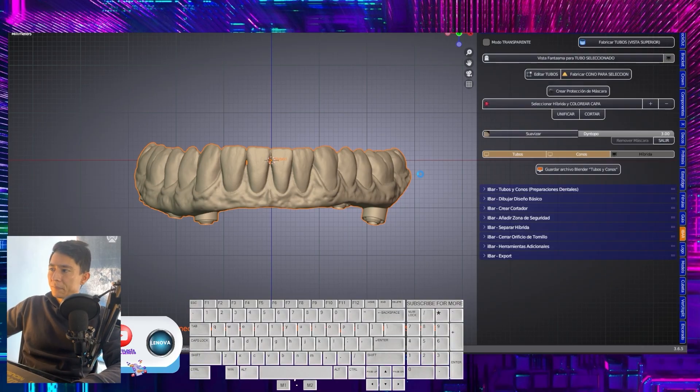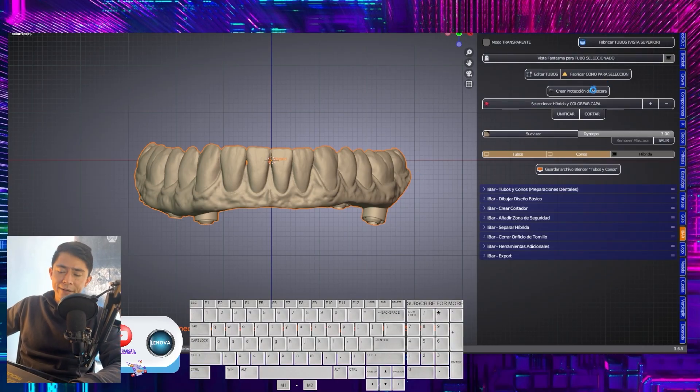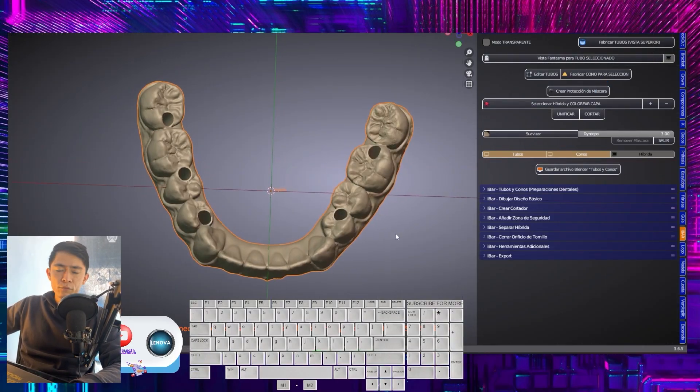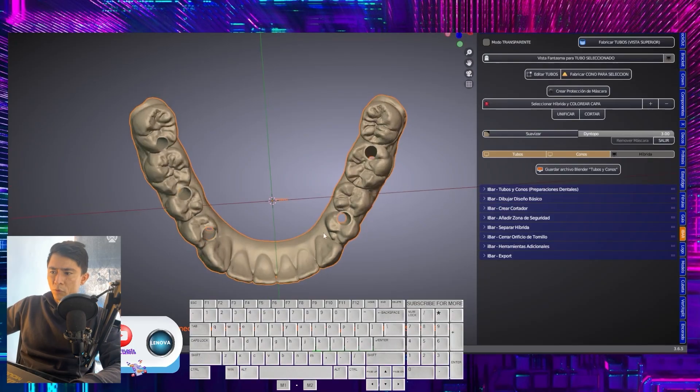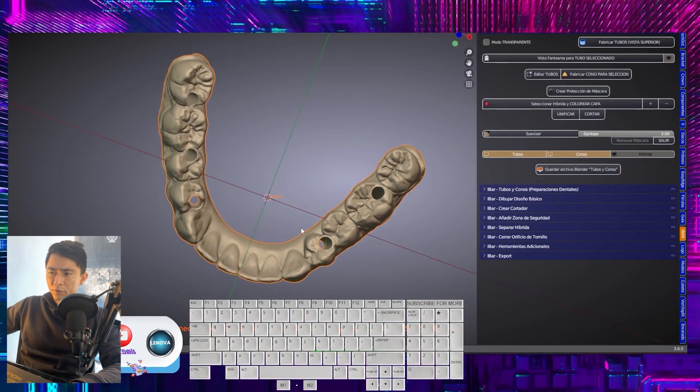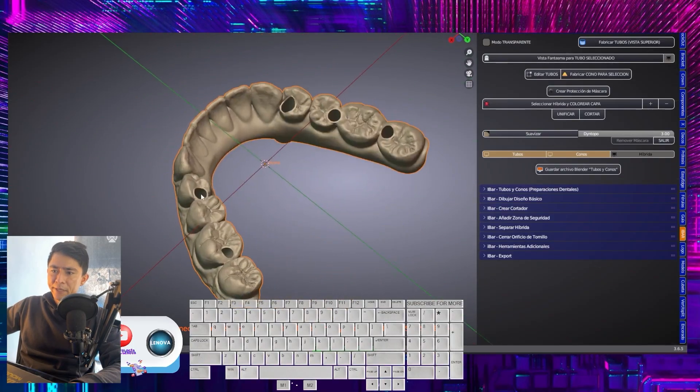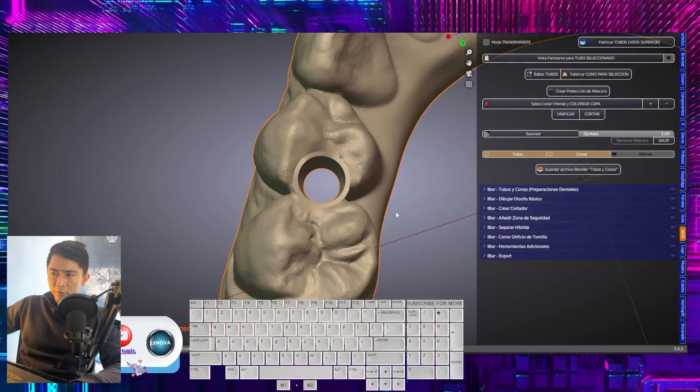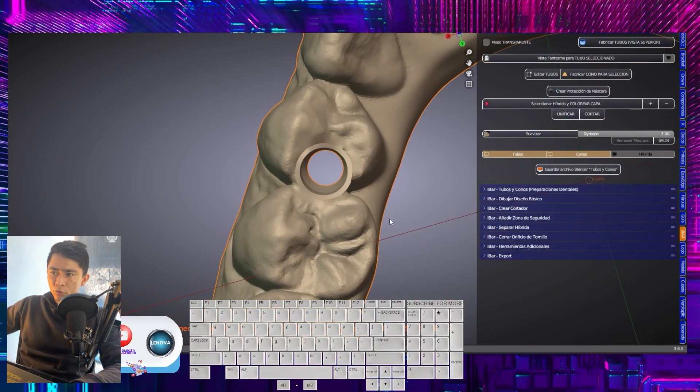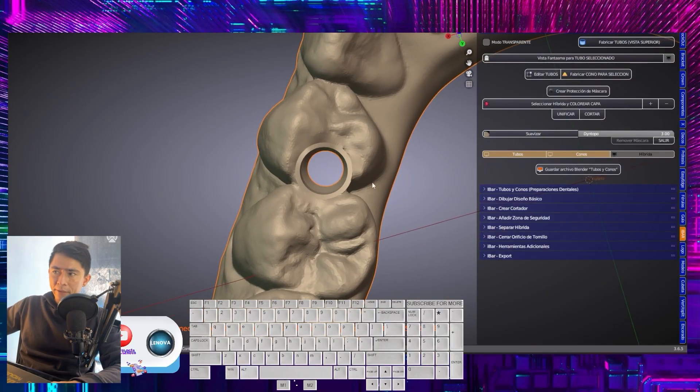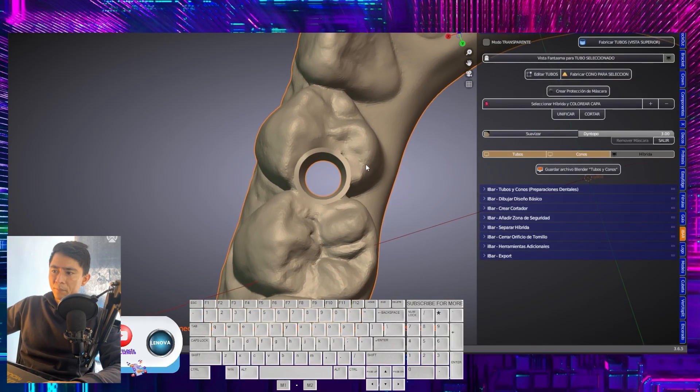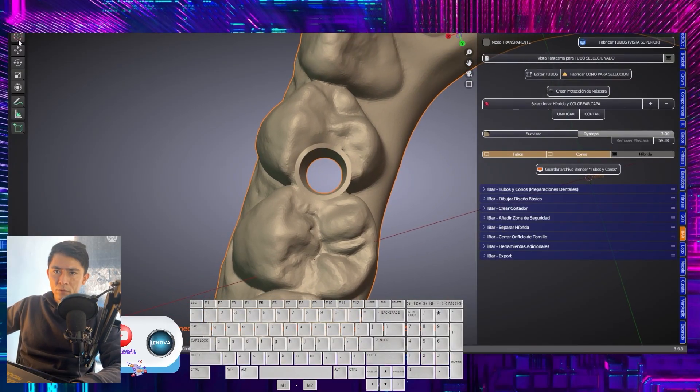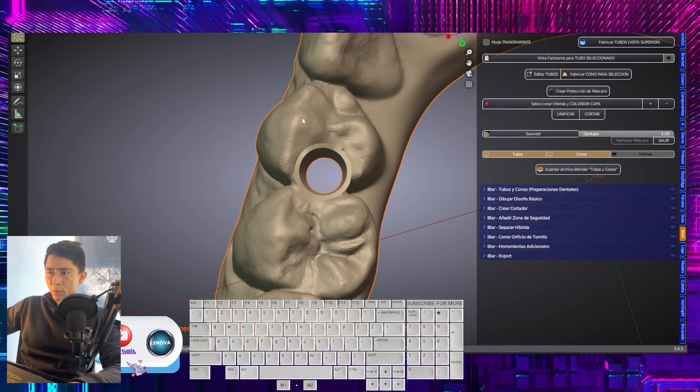Here we will create the protection for the chimneys. I will position myself on the first chimney. I position myself in this occlusal or incisal view, depending on the location of the implant. Select the cursor, place it on the cast of the premolar, and then instruct it to manufacture tube.